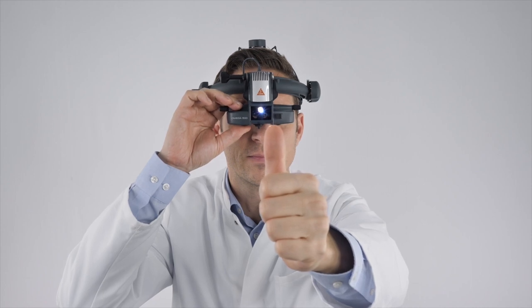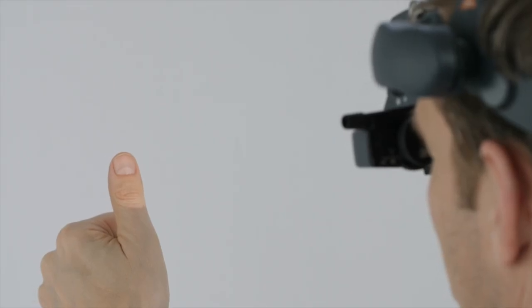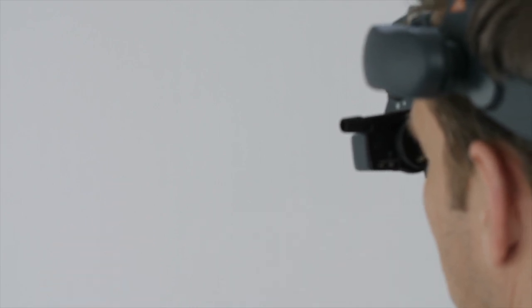The thumb should now be focused. The stereo optical vision of the instrument should now result in a round and synchronous overall picture.